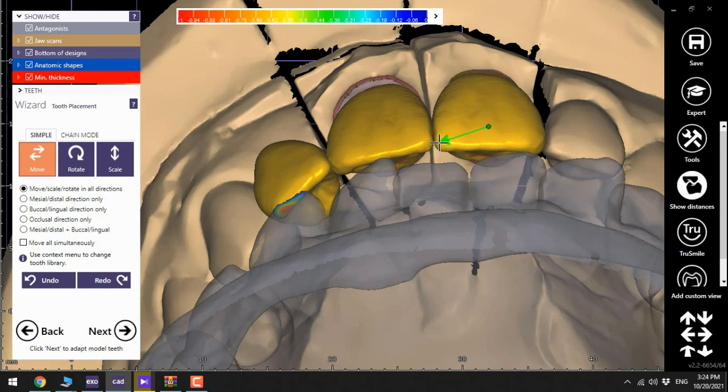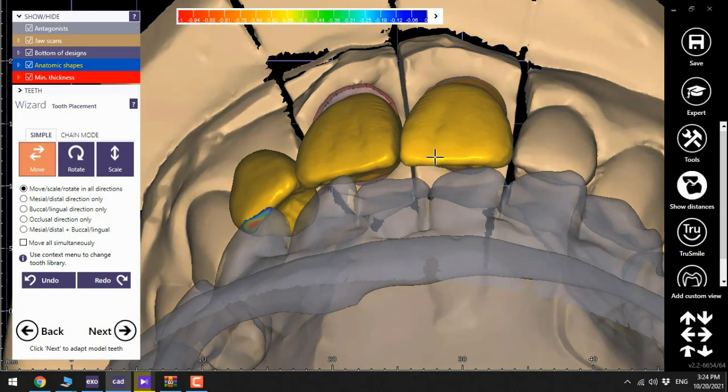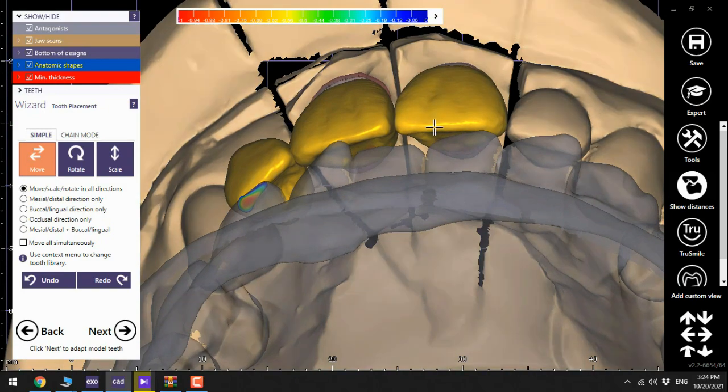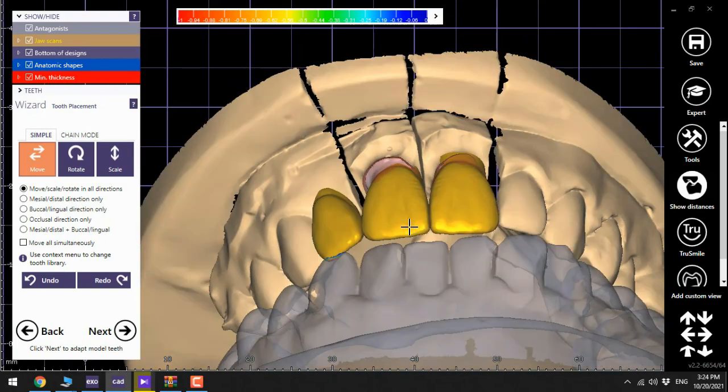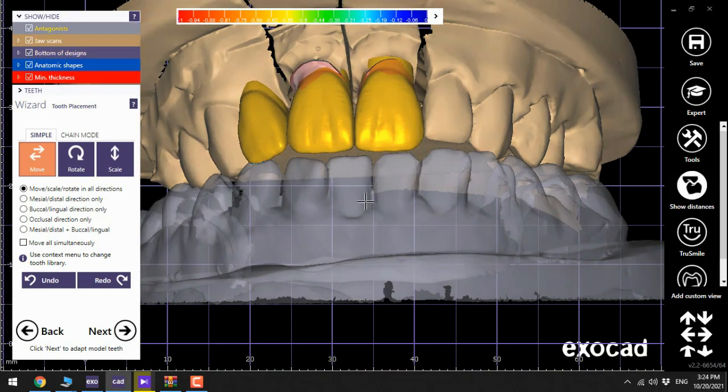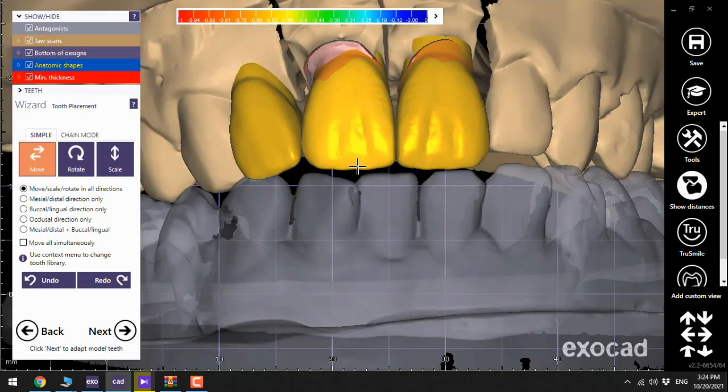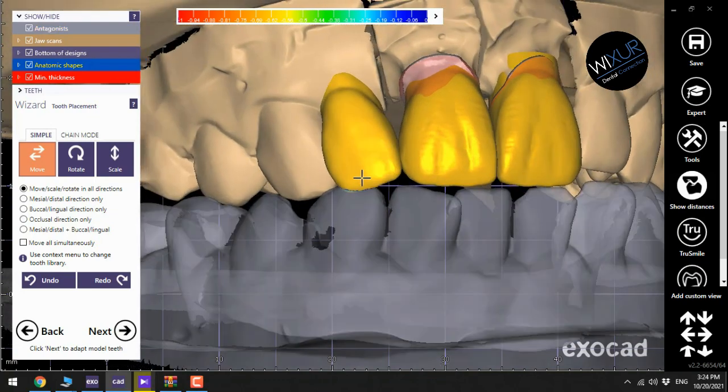This makes it always faster and easier to design using hotkeys, otherwise you need to switch between the available options on the left side between move, rotate, or scale.